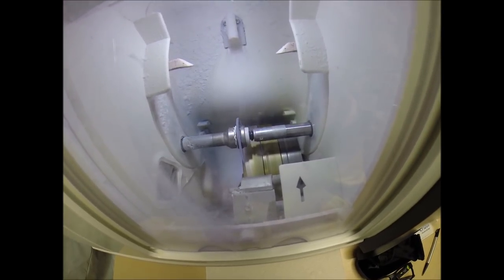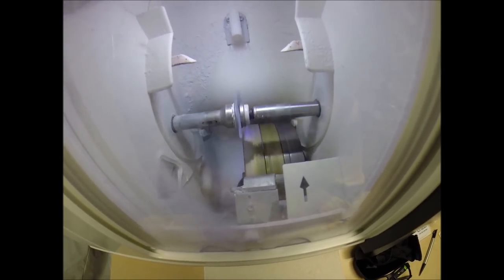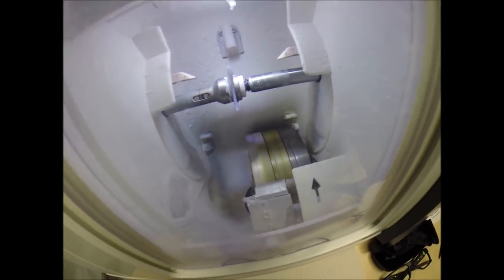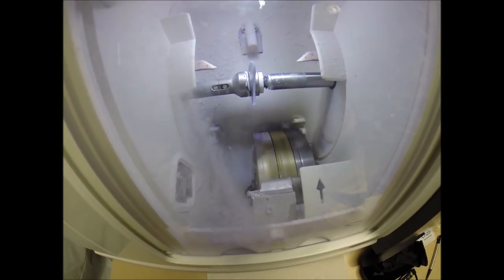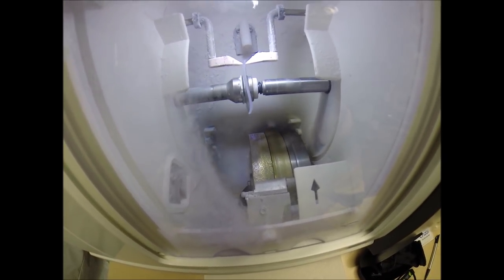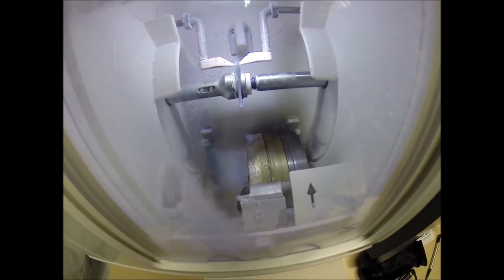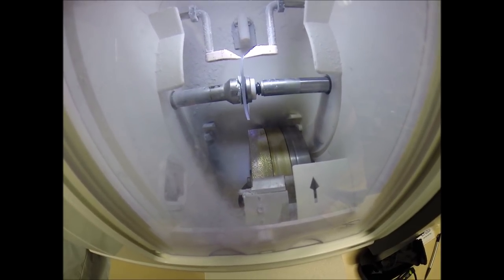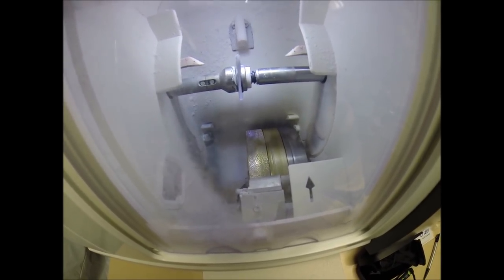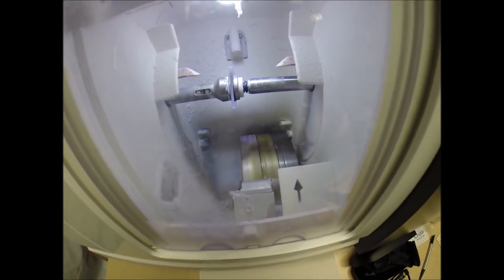These are the same type of lens material that our soldiers wear overseas in combat zones to protect their eyes from shrapnel and flying debris. It's also the same lens material that OSHA requires in safety glasses to protect the eyes of workers on factory floors from the same hazards. It also has 100% UVA and UVB protection built into the lens. Your eyes are eight times more sensitive than your skin to damage from the sun, so this is permanent sunscreen that does not need to be reapplied. If you notice, your lens is completely flat — just like a nickel — it's just about to go to the bevel wheel to get the V-shaped bevel cut into the lens.